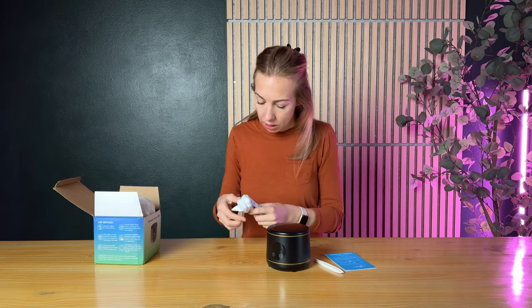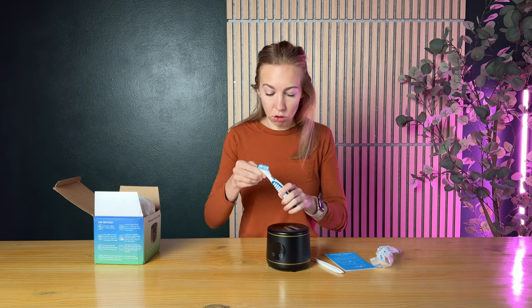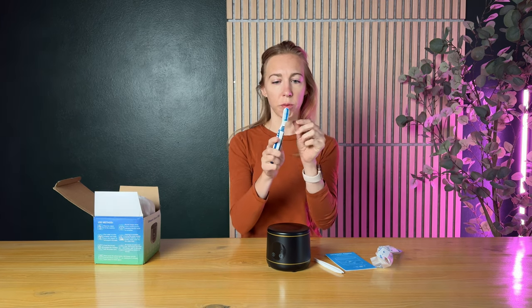It has this LED screen here. And then here is a super scrubber. These bristles are kind of like a tough toothbrush, and then these are a little bit more like a softer one. It has all these grippy things on it too, so you can really get in there and scrub things afterwards.